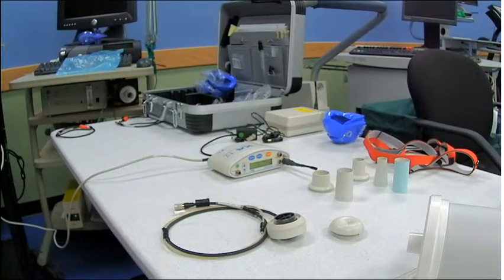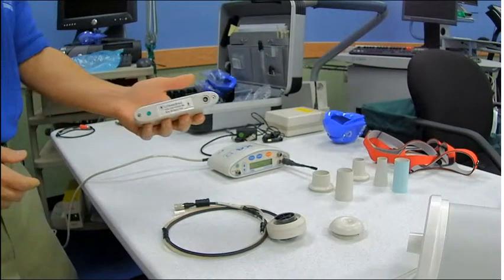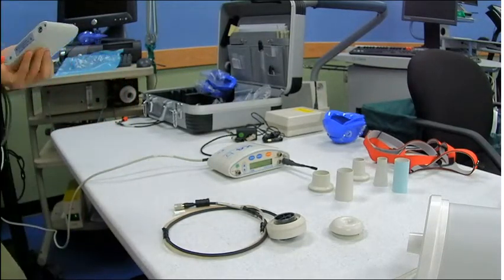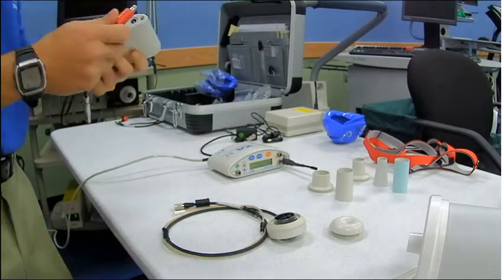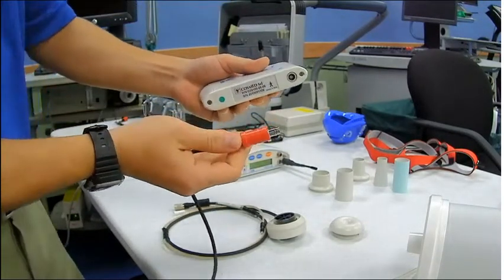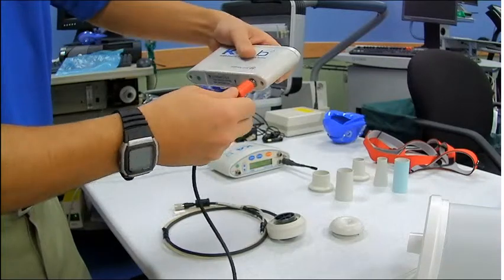I'm going to go grab the battery and show you guys what it looks like. Grab the adapter. The red side underneath the red is marked with a green dot, just the same as the green dot on the back of the connector. That's to show they go together.